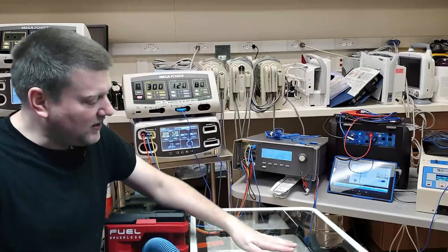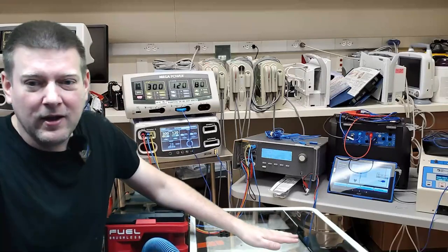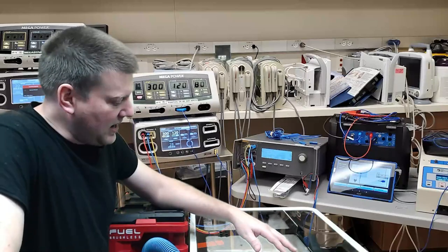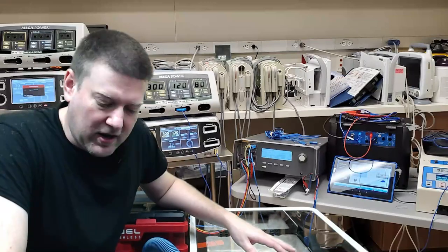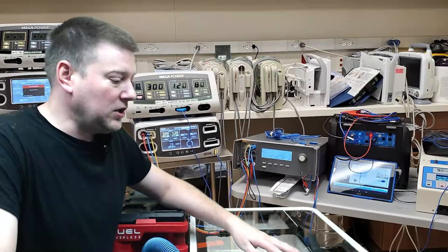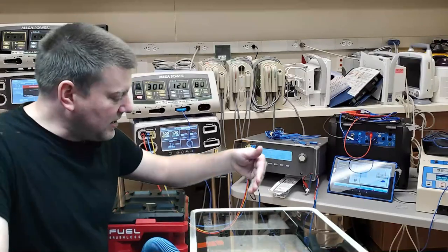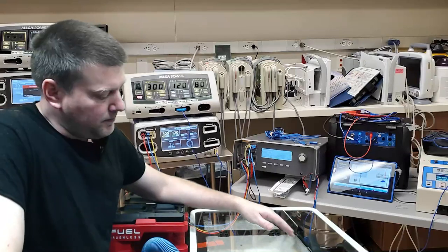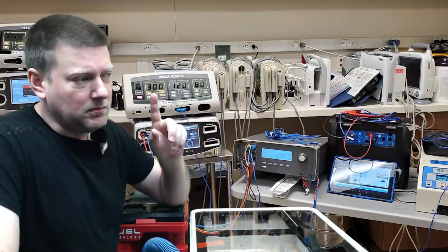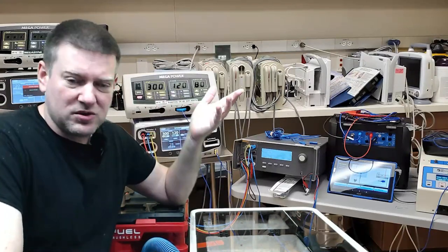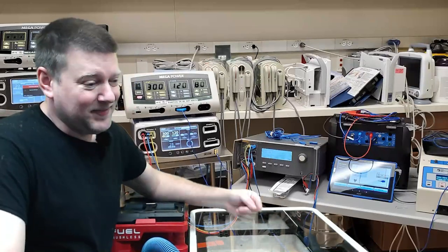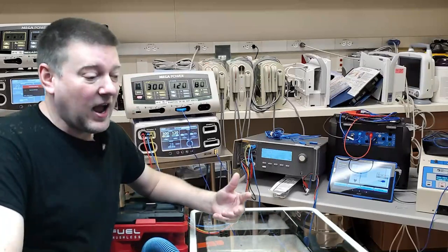I have a perfect example here - this heater which you'll be seeing on a future video. It has liquids inside it. It's got an evacuation procedure to clean it out, but first I don't want to clean it out completely because it would lose its prime, and secondly there's a bunch of material in the bottom.